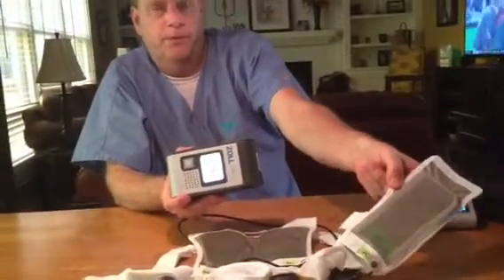The minute you receive a treatment, how do you know if you received the treatment? If you're alone, that's not an issue. You will regain consciousness. The device will say treatment has been given. It'll keep saying call an ambulance. The most telltale sign is that blue gel will be all over you. You will feel it, you will see it. Once you see that, and this says treatment given, you call 911 immediately. Keep the life vest on.